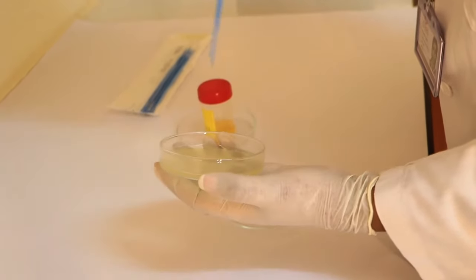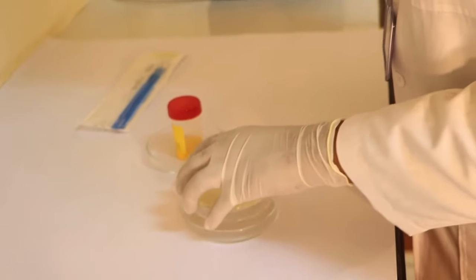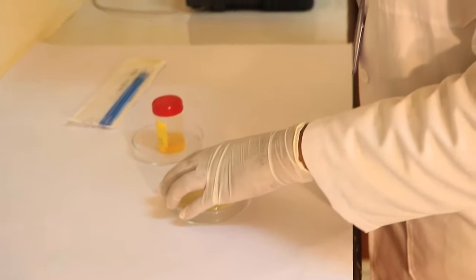You may then incubate the plates at 37 degrees Celsius for 24 to 48 hours.